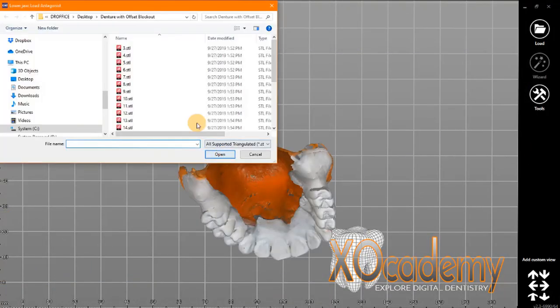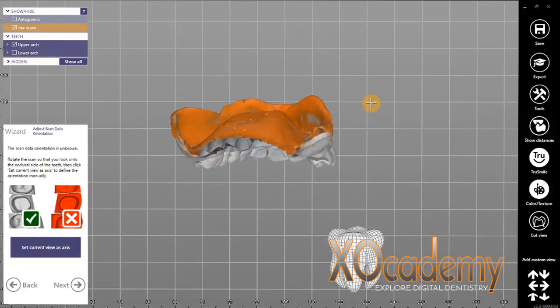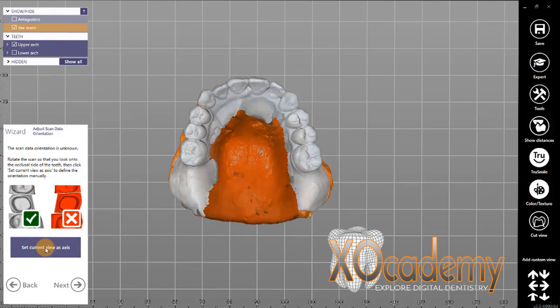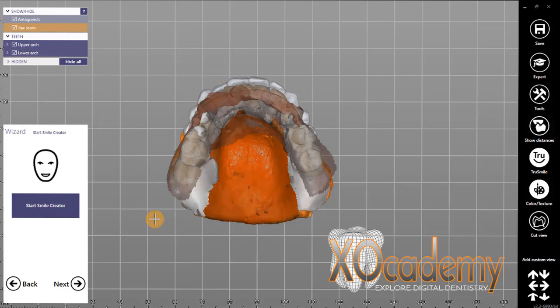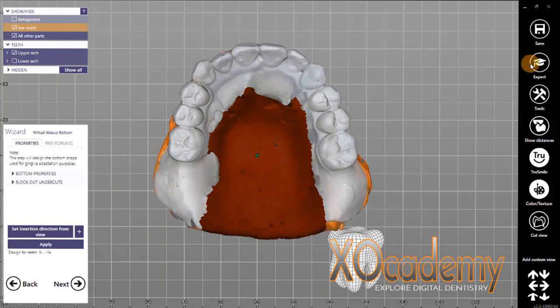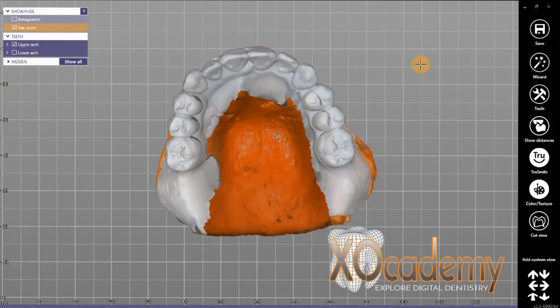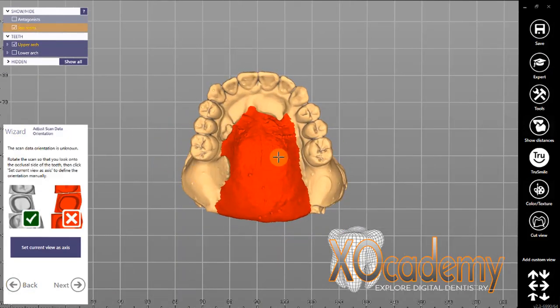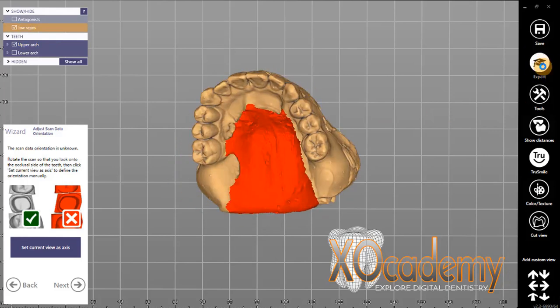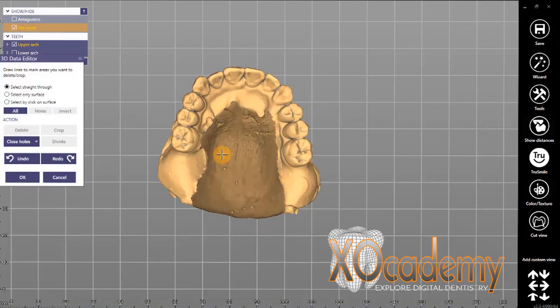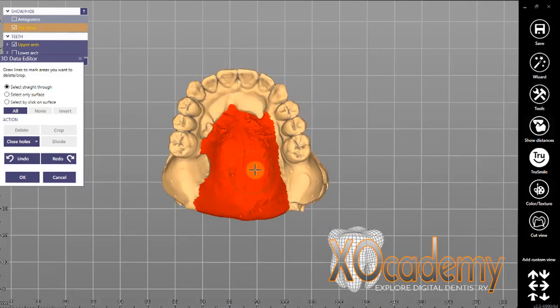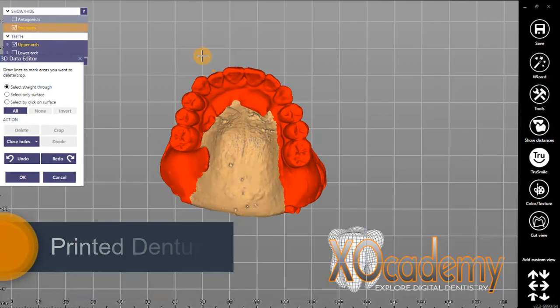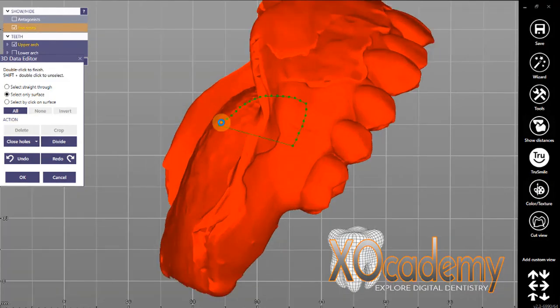Going through the whole workflow right now in this video — we're first aligning our jaw scans. In this case I took an impression of an upper trial smile. The teeth aren't where they should be but it allows me to get occlusion and a bite registration, something the patient can put in their mouth and bite together in a repeatable stable position. I've scanned that impression and I don't have the palette for that denture but I've got the teeth still there, so I need to remove the teeth and flip it so that the red surface is actually beige. The way you do that is by entering expert mode of ExoCAD and swapping those surfaces, so the inside is the outside and the outside is the inside when you're done.